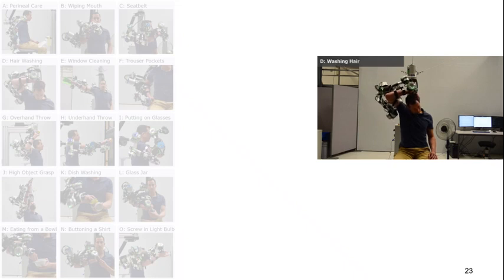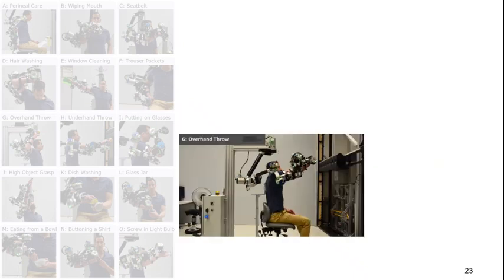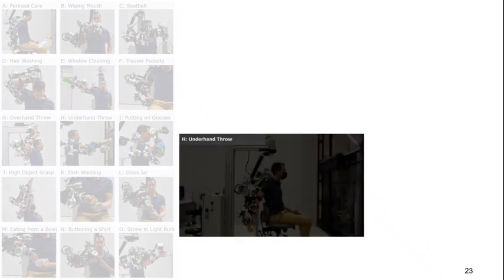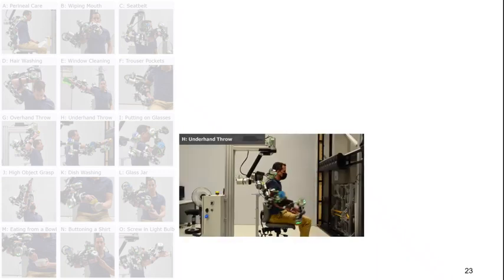Or interactions with the own head, where for example we simulate here washing hair, which basically involves moving with the hand around the full head and the face. But we can also do fast movements like for example an overhand or an underhand throw shown here.